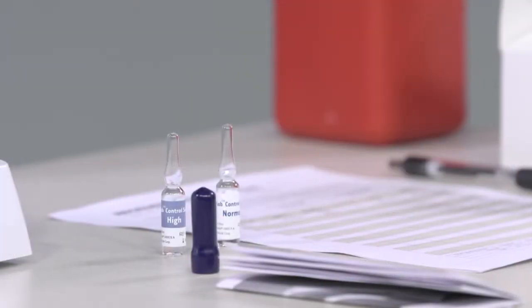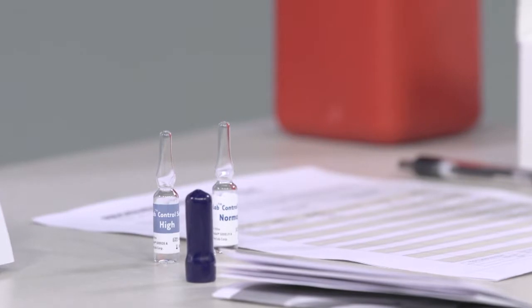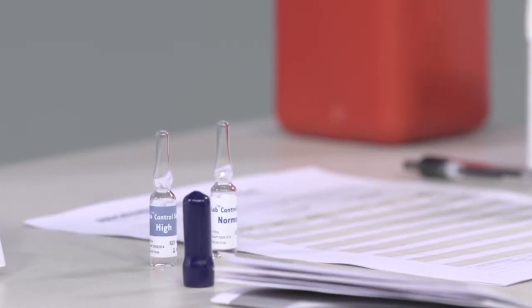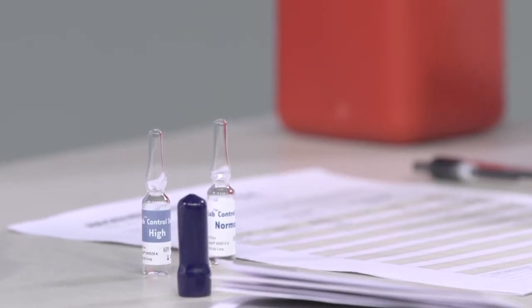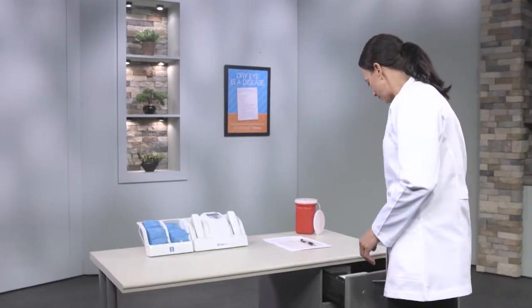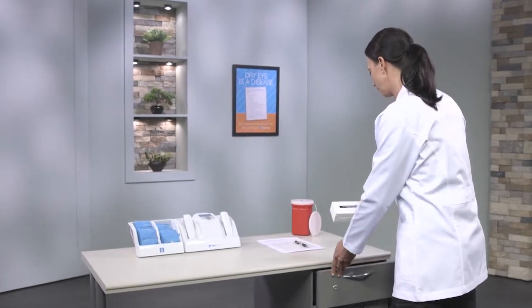The single-use glass bottles or ampoules contain non-hazardous saline solutions with known osmolarity traceable to a national standard. The ampoules should be stored at room temperature. They should not be refrigerated or stored in a hot place.